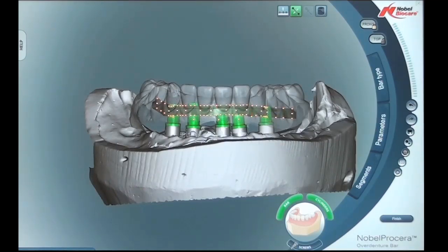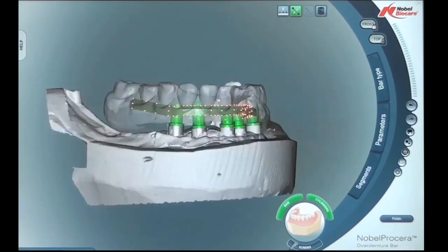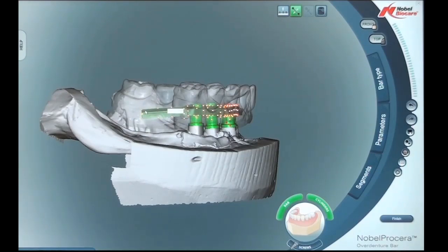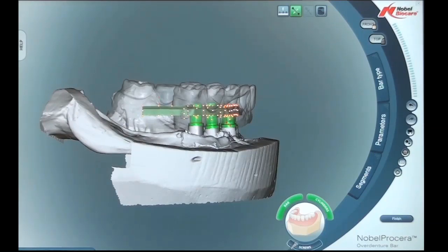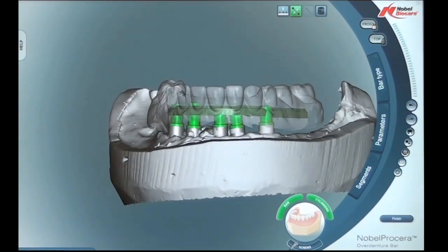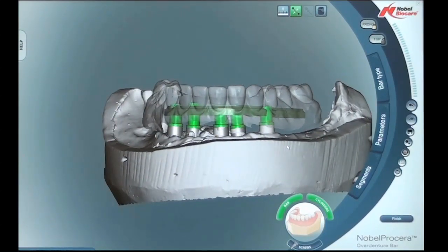The software is very versatile and allows you to make many adjustments and movements to the bars. On the distal cantilever segment, by clicking the white mark at the very back we can lower the bar down to the correct height. We need to ensure there's plenty of room underneath the bar for acrylic, and also room on top of the bar for the denture teeth and the acrylic segment. We're trying to find a nice balance and harmony between all three factors: hygiene and cleansability underneath the bar, strength of the bar so it won't break, and room for the acrylic and denture teeth around the bar.